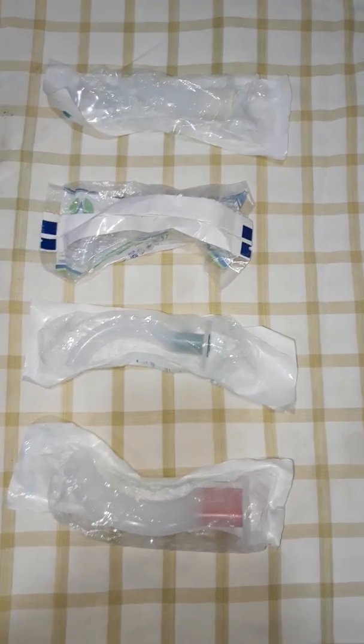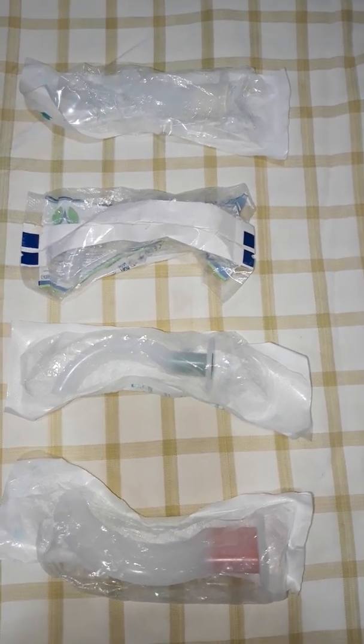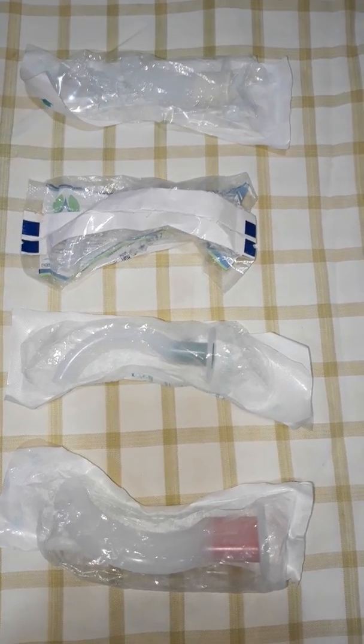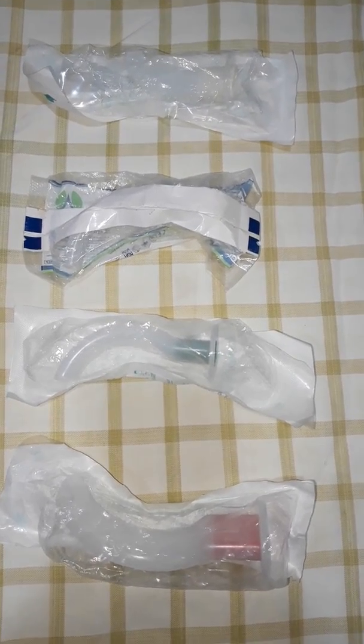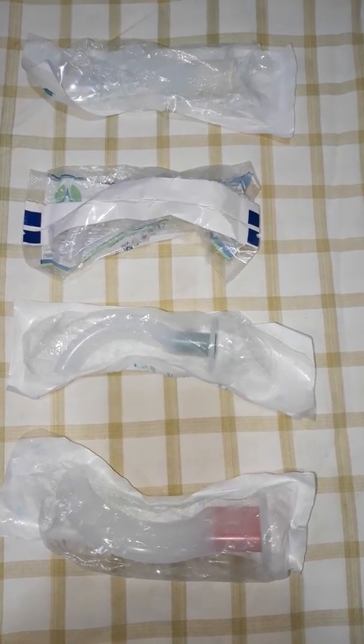Hi Friends! Today we are going to talk about the Oropharyngeal airway. The Oropharyngeal airway is called Guedel airway, that's why it's called Guedel's airway.